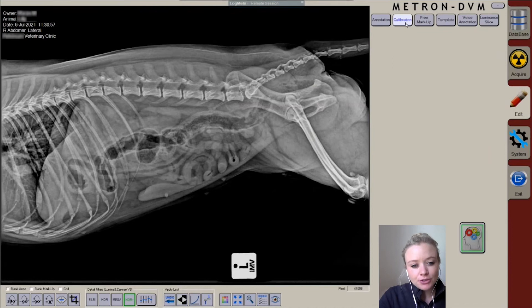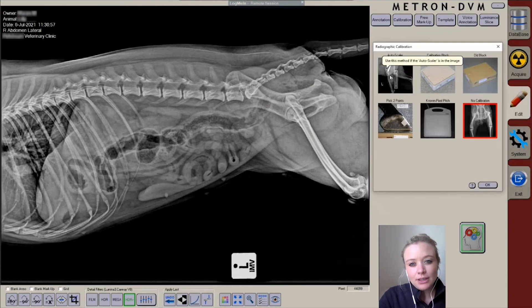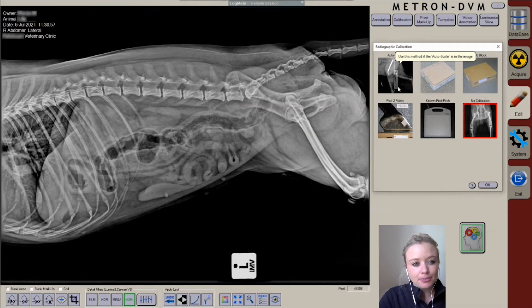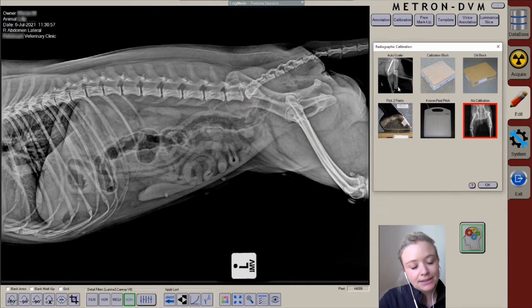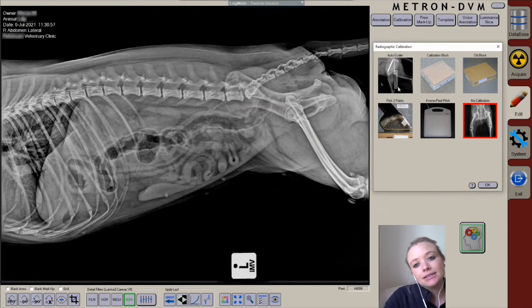There are a few options for calibration. The first one is the use of an auto-scaler, which will have been delivered with your X-ray system. As long as you include this in your image, the software will automatically detect it and calibrate accordingly.